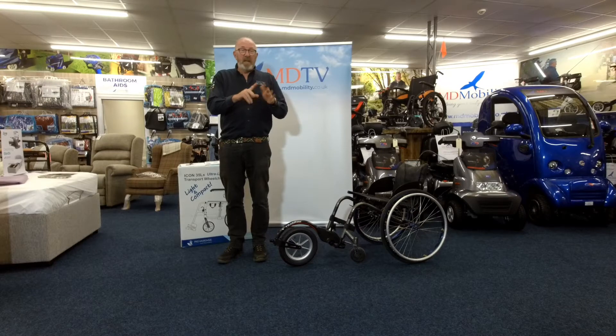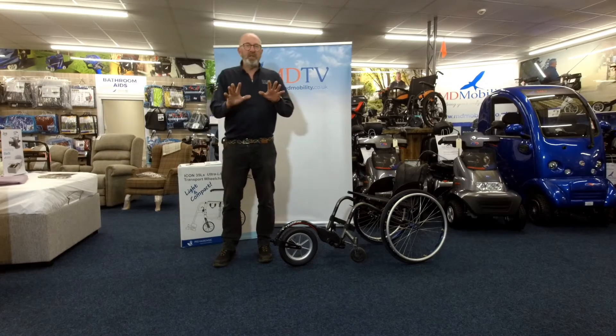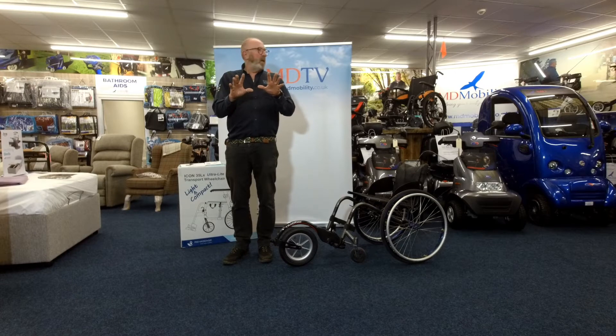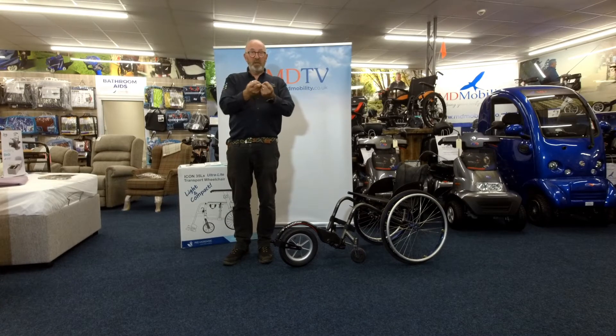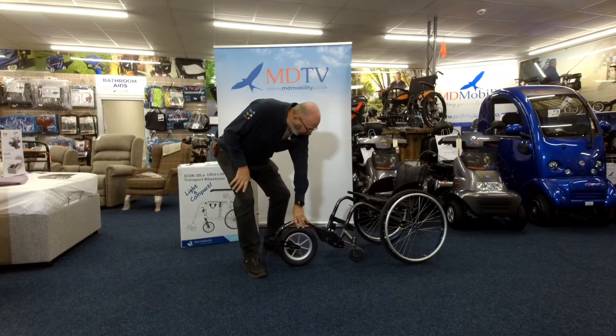Whichever they want to call it, any chair that you want — it's fine. But most of the time with that type of chair, it's actually got a big front so that it comes down like so, and you've got your little caster like this little fella here.